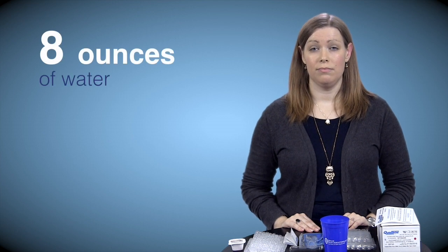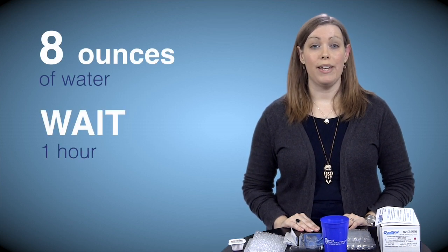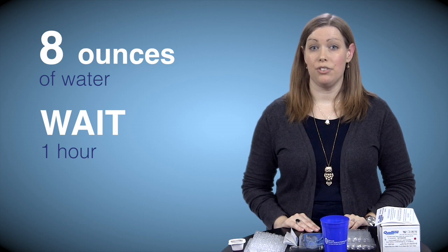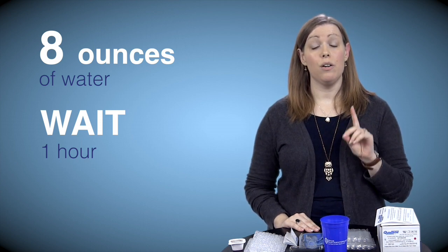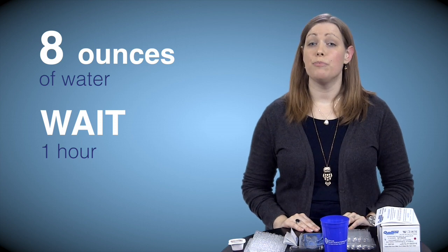When testing for lactose and fructose, there are only 4 tubes that are needed. You will do the baseline tube first. After completing the baseline tube, you will mix your powder or liquid with 8 ounces of water. After drinking, you will wait 1 hour before collecting your next tube. You will do the remaining tubes every 1 hour until all tubes are collected.